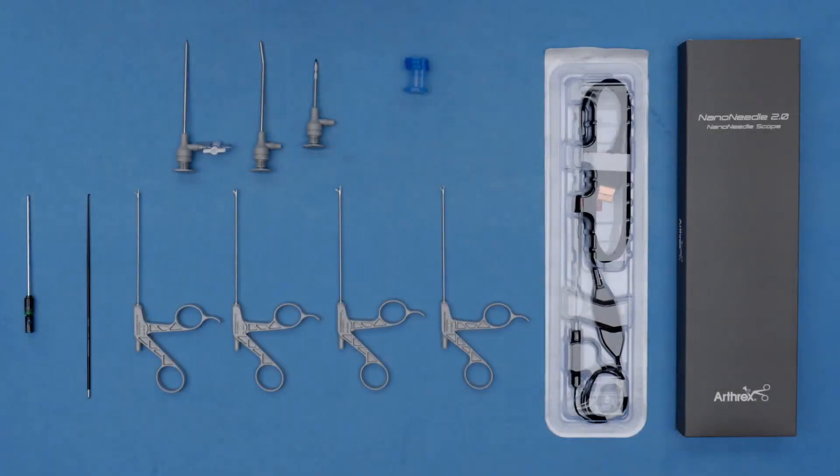The amazing thing about these new instruments is not only are they autoclavable and reusable — which will save your surgery center money — but they're bendable. Some people like a lot of upbite, some people like a little bit, some people even like a reverse up. So anything you think would be helpful, you can mold it and use it as you wish, or you could even keep it in your tray.